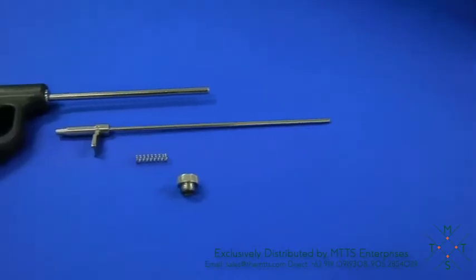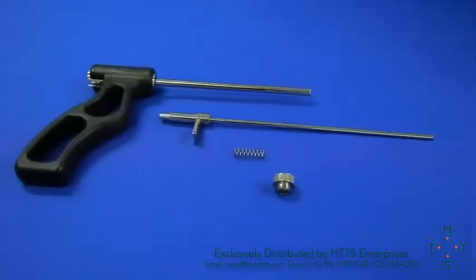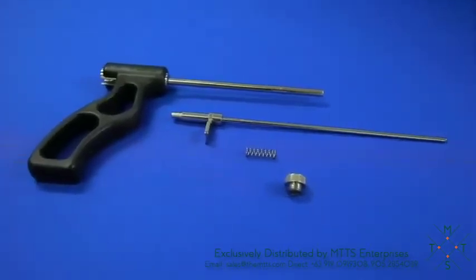The handpiece has been designed with only four individual components and is easy to assemble. To avoid any critical component damage during cleaning and ongoing service costs, there are no critical components such as a blade or seal on the reusable handpiece.